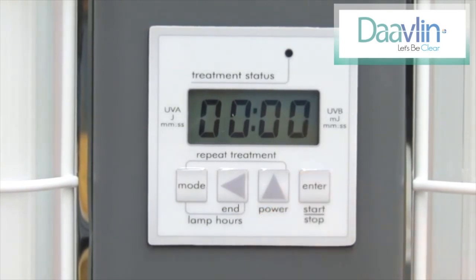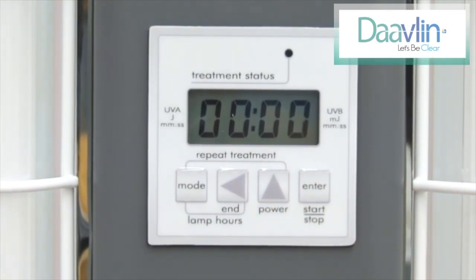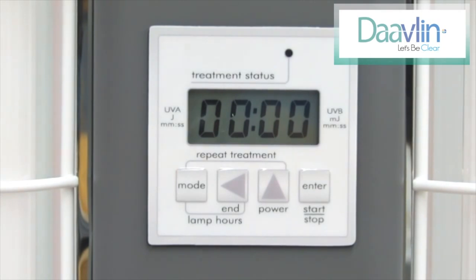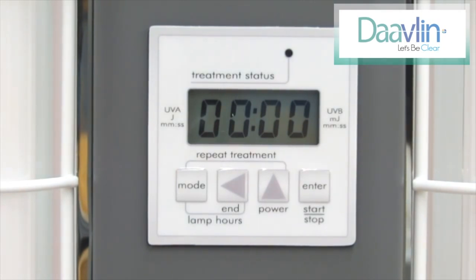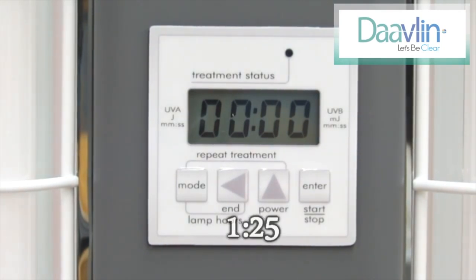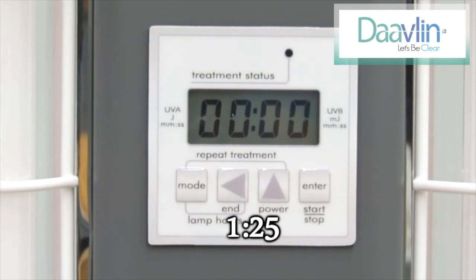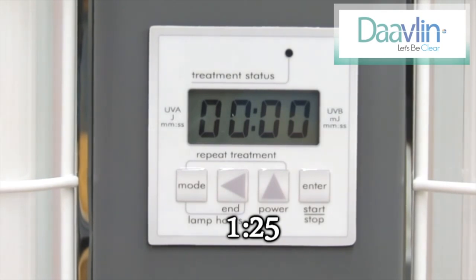A new screen will appear that has four zeros separated by a colon. This is where we will enter the treatment time. In our example, the treatment time is 1 minute and 25 seconds.